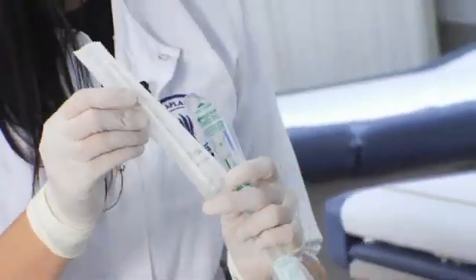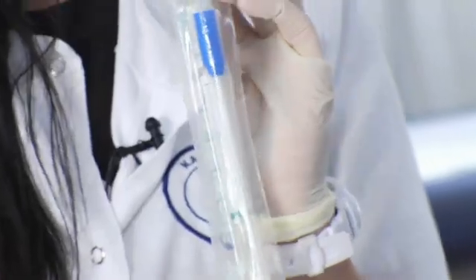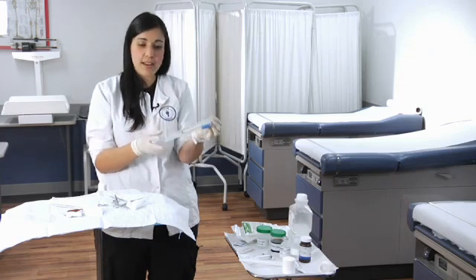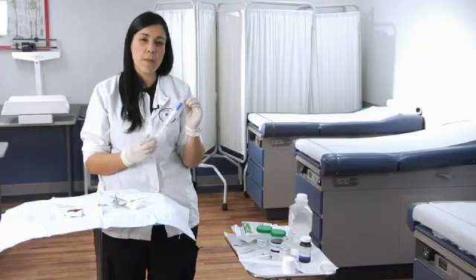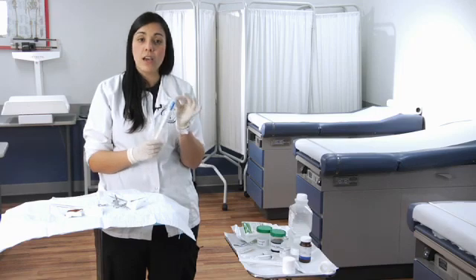A couple other things to also have on hand: a sterile cotton tip applicator, which physicians might choose to use to help with the packing. We also have a sterile culture swab, used if the doctor wants to culture the pus or fluid that comes out once it is drained. If the doctor wants to know what specific microorganism is causing the infection, they'll use it for testing — for example, to see if it's a staph infection, MRSA, or strep infection — by doing a culture swab and sending it to the lab.